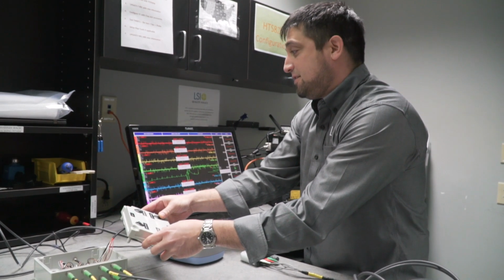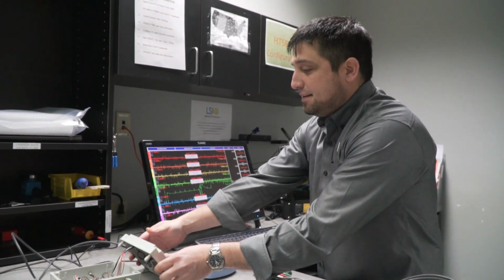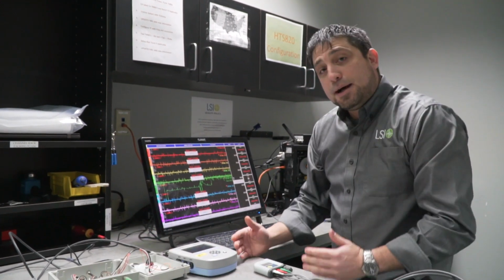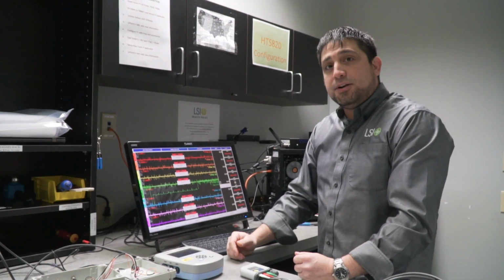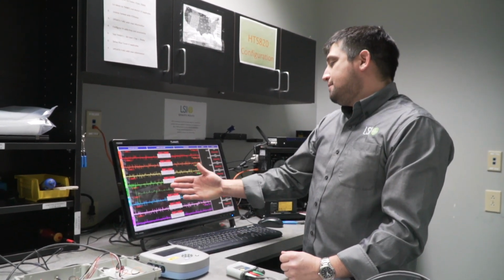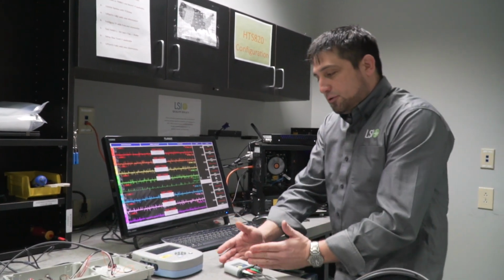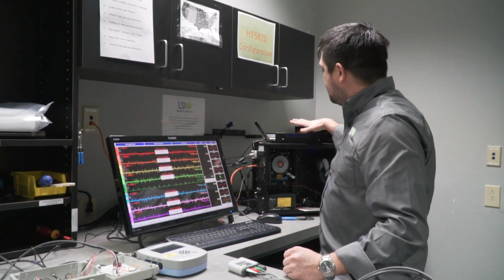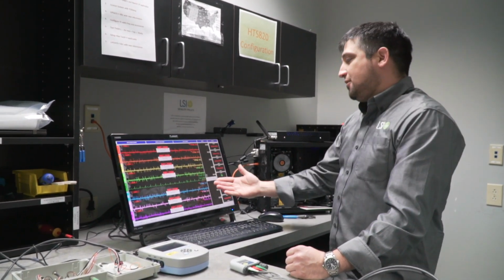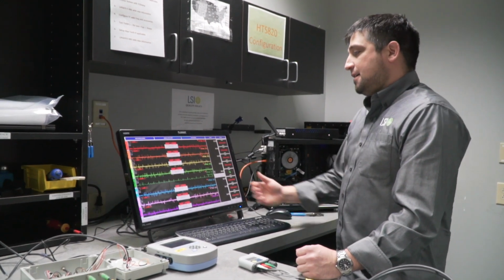And so in addition to the fact that we accomplished the project, we also sped up our testing. So it was a win-win all the way around. You can see here I'm testing on channel 5. But basic concept, we have our transmitter that transmits human heart rhythm, detects it, transmits it out to our central station. Our central station relays that information back in and gives us a nice pretty signal.